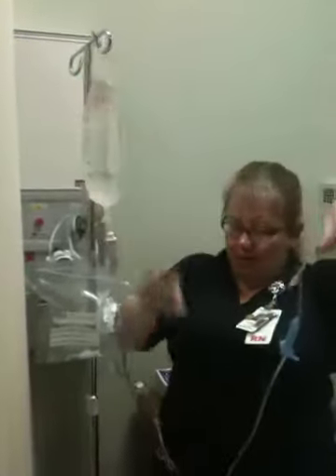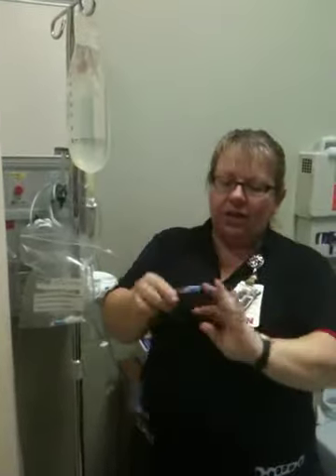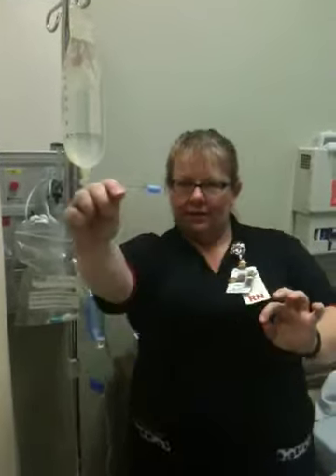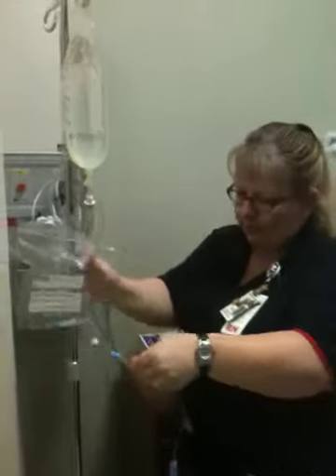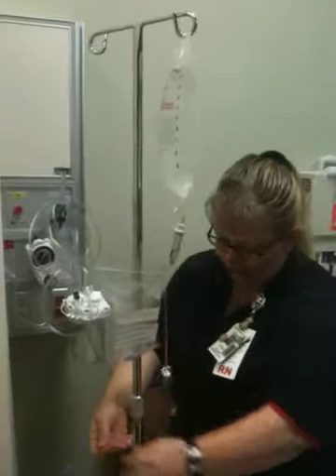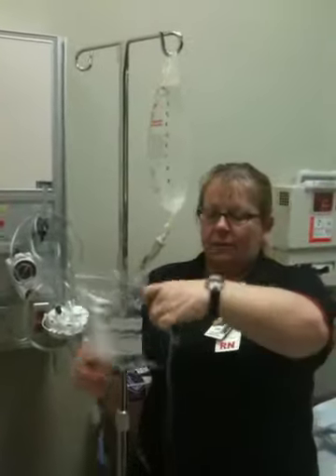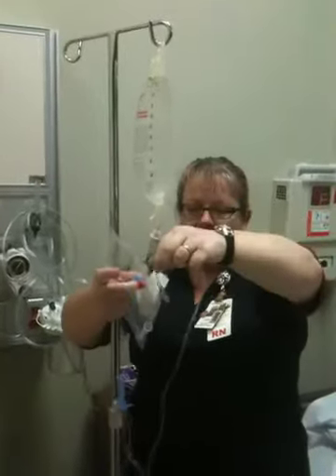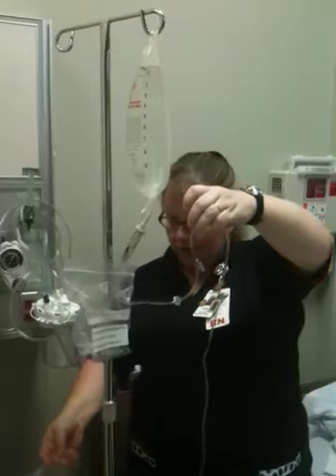You can go ahead and hang your bag. What you're doing is letting the fluids come all the way through it. You do not have to take the cap off — the fluids will drop through with just the cap right there. One thing you might want to do if you see a lot of air bubbles: turn the tubing upside down and flick on it — see how many more air bubbles come out and start going down.